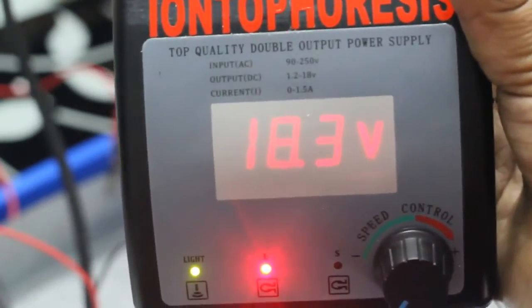Hello, today I'm going to talk about the iontophoresis device. The device is for hyperhidrosis treatment for sweaty palms.